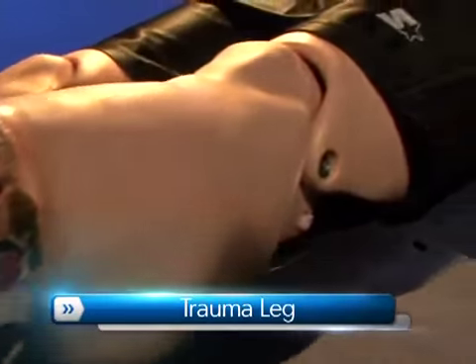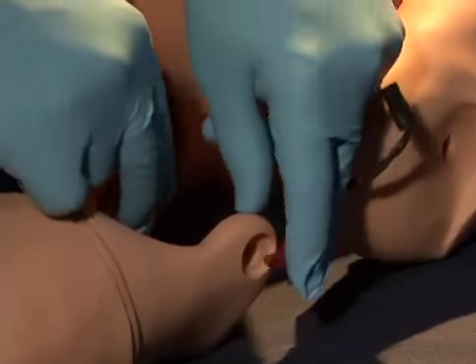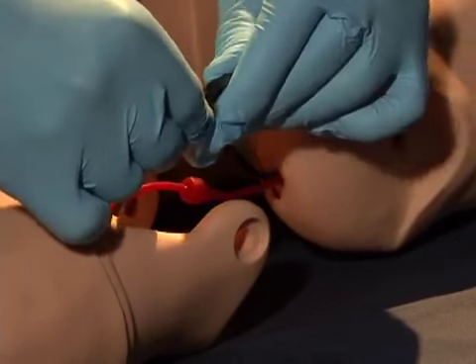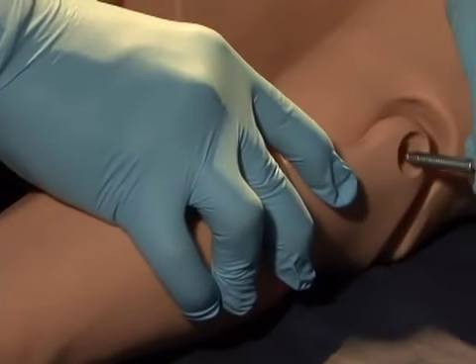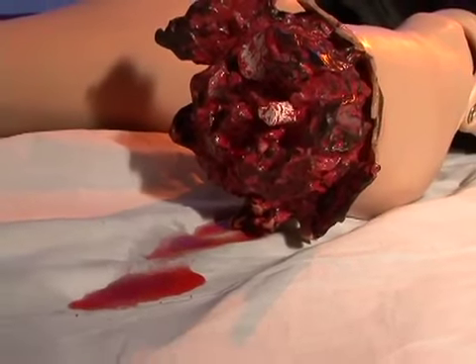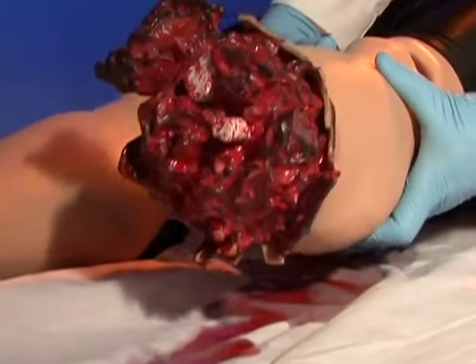To accompany the trauma leg, HAL now has an automated bleeding trauma arm. Attaching the trauma leg or arm is a breeze using Gaumard's Quick Connect trauma kit fittings. Both trauma arm and leg feature realistic arterial bleeding that is pulse and blood pressure dependent. Blood flow can be stemmed with the use of a tourniquet.